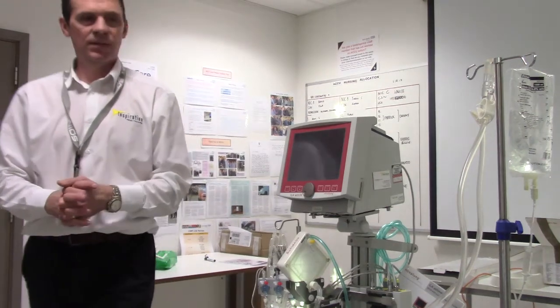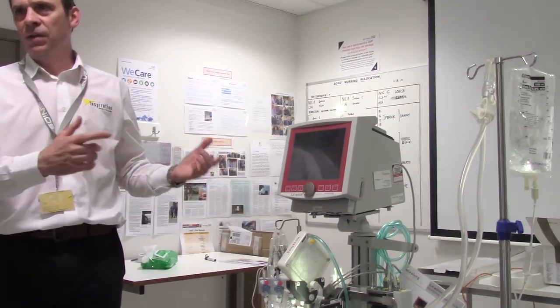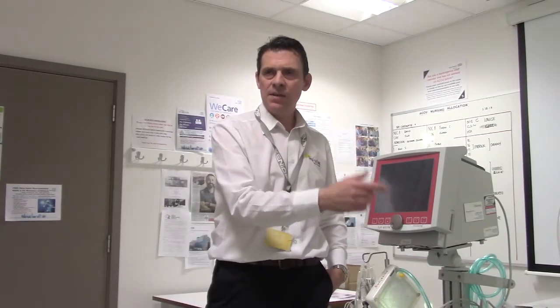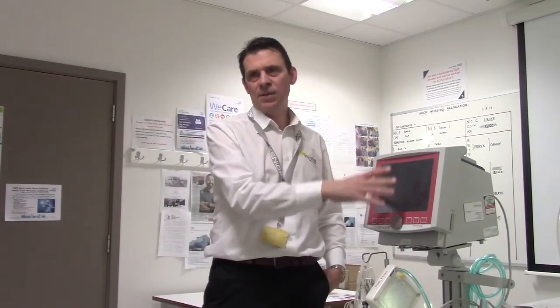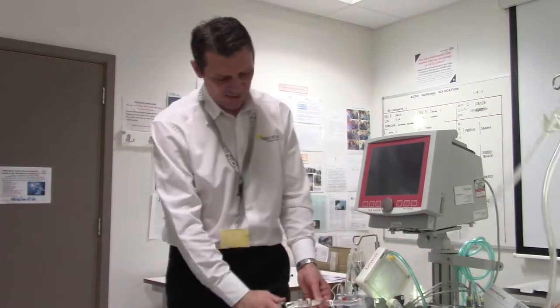The clock is now ticking for your next patient, I think. By all means have a go yourselves — it's worth going through the motions rather than just watching. You need to see how it feels and how easy this is to use. It's a monitor at the end of the day, there to alarm and support you. No difference — remember, this is CVVH for the lungs, and it's a lot quieter than CVVH. You don't have to change it every 72 hours either.